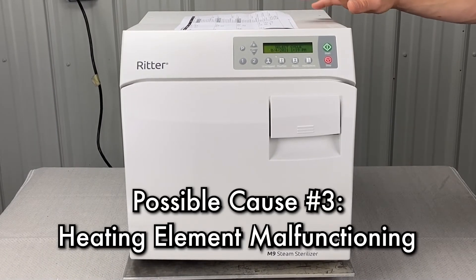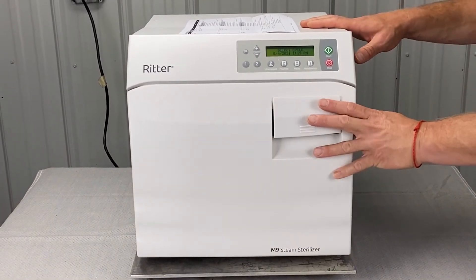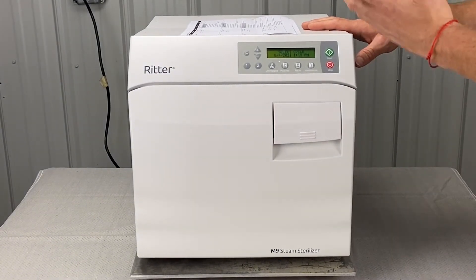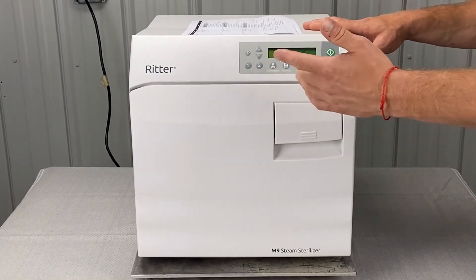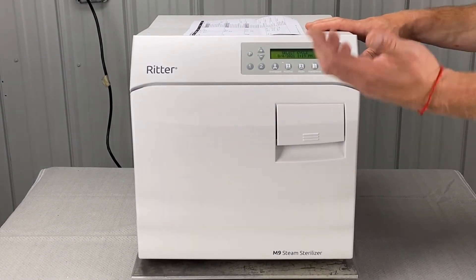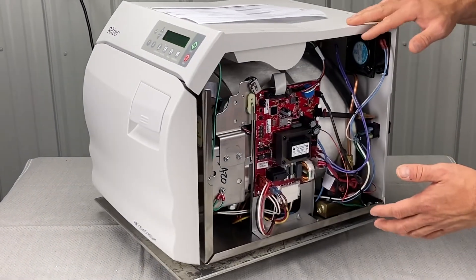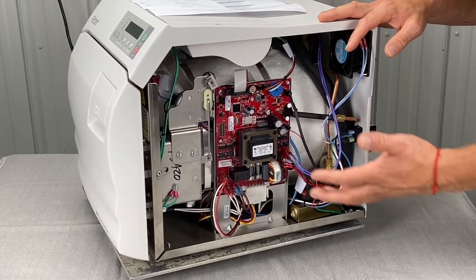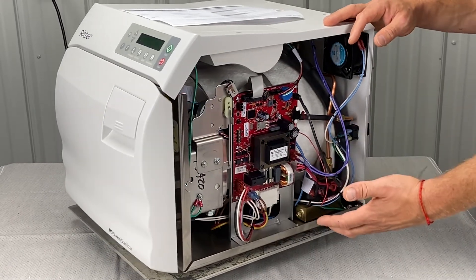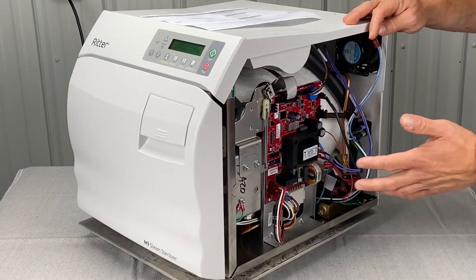Next is the heating element malfunctioning. If we run a cycle, hit the start button, it fills, and goes into heat-up mode — if you don't see the temperature rise above room temperature, around 70 or 80 degrees, and it should raise pretty fast, that's going to isolate either the heating element or the main PC board. It could be a main PC board repair or a heating element replacement. I don't recommend end users doing either — give us a call and we can help you out.